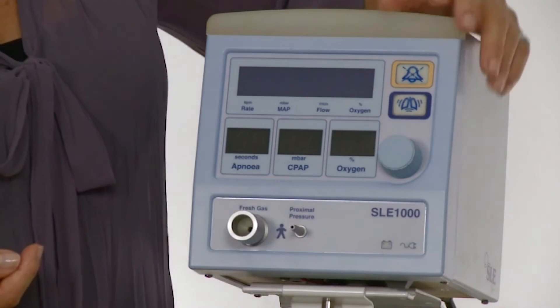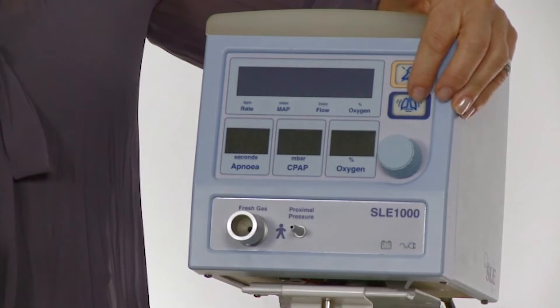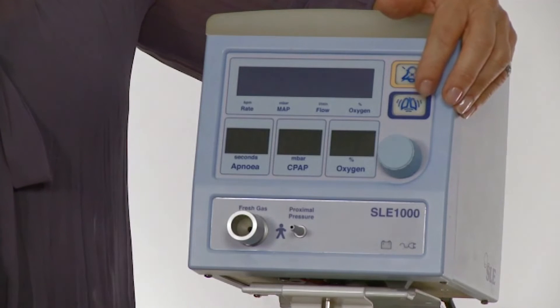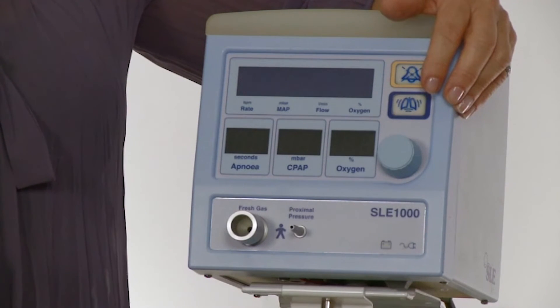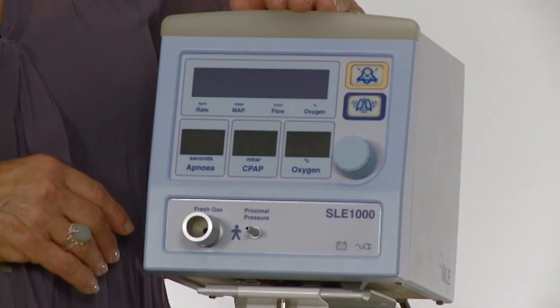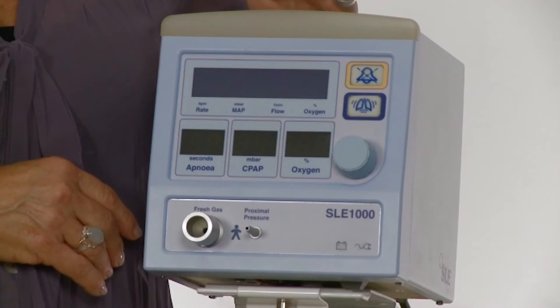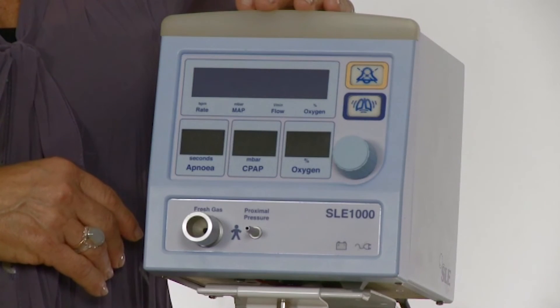Underneath the audio pause button is the boost button. By pressing the button, a boost of pressure — 3 millibars more than the selected CPAP level — will be delivered for a maximum of 30 seconds, and this can be repeated. On top of the unit is the alarm bar, which illuminates in different colours: red for a high priority alarm, yellow for a medium priority alarm, and blue for a low priority alarm or a technical alarm.